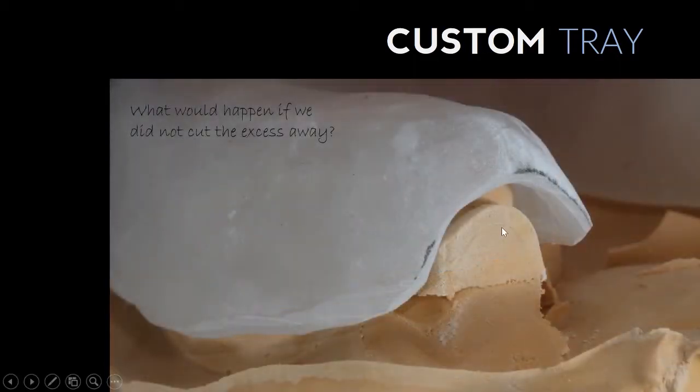With this tuberosity area. So if we didn't cut this away, what you would find clinically if you were to use this on an actual patient is that part of that acrylic would start to dig in into that tuberosity area.